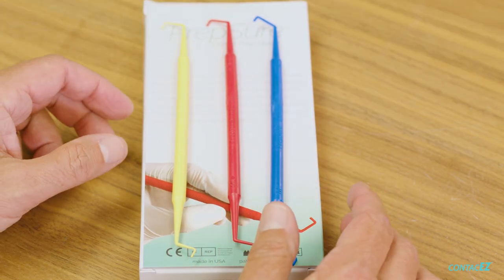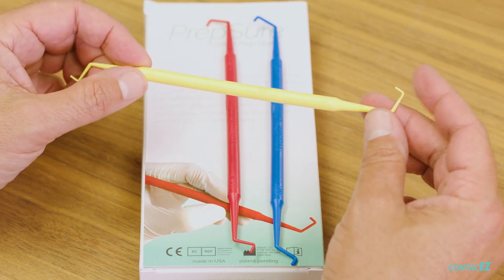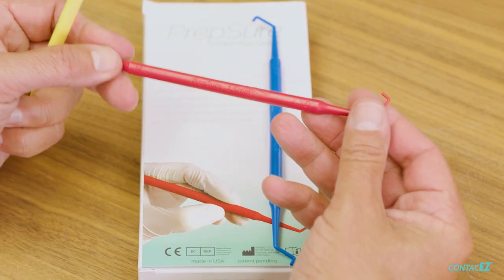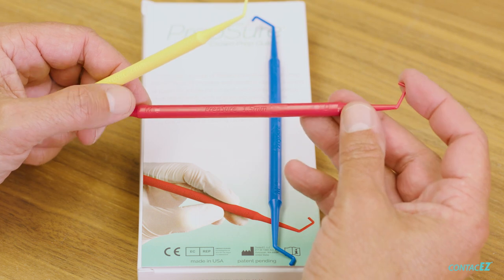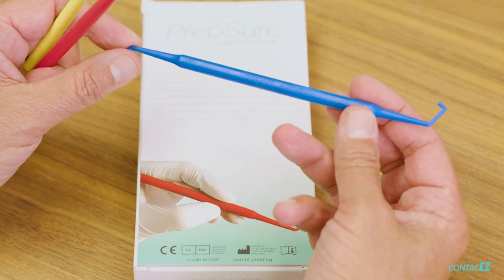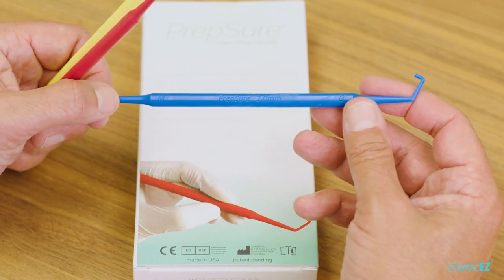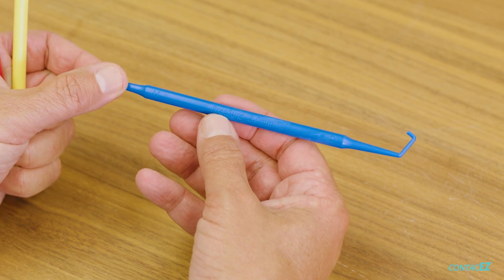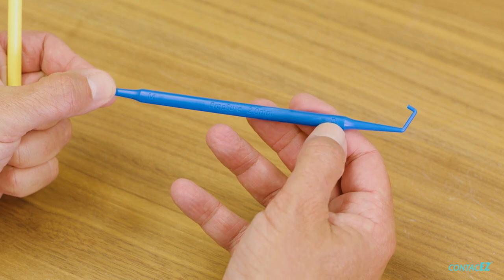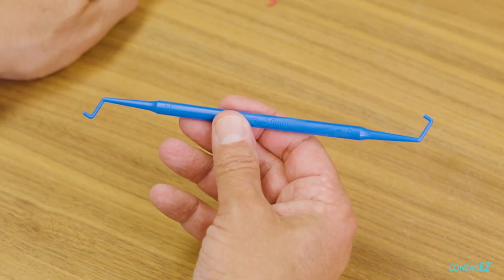Let's take a closer look at the PrepSure guides. They come in an assortment of three. We have the one millimeter tip thickness, which can be used for solid zirconia crowns, or this is the minimum material thickness for lithium disilicate. We have the 1.5 millimeter thickness PrepSure — you can use this as an ideal thickness for lithium disilicate, or certainly for solid zirconia. I prefer two millimeters if I'm going to be doing a PFM, for example a PFM bridge, or porcelain fused zirconia, or an anterior tooth where I want two millimeters of incisal edge reduction for a really nice aesthetic restoration. You can see the indication for the distal end and the mesial end — they are slightly different. There's a longer reach on the distal with a back action hook that you'll see in use in just a second.